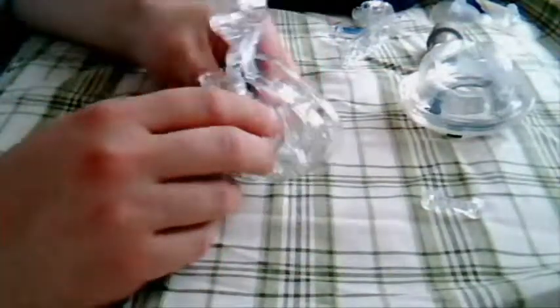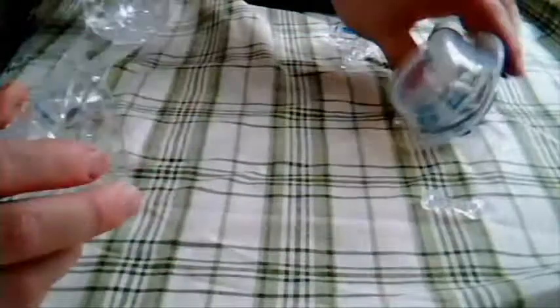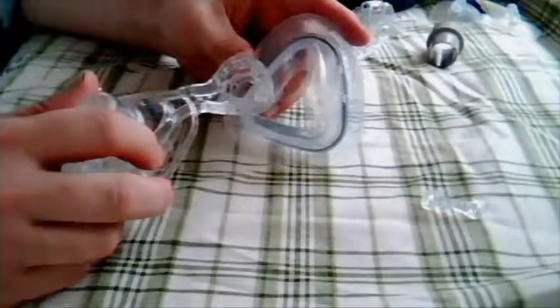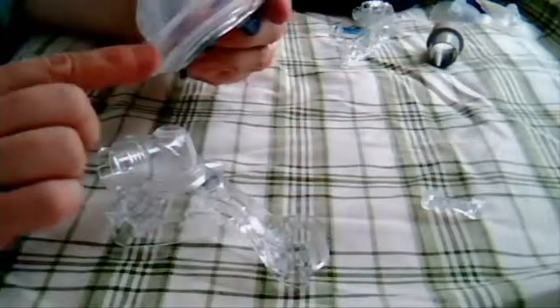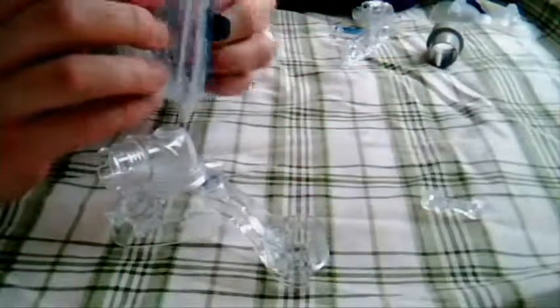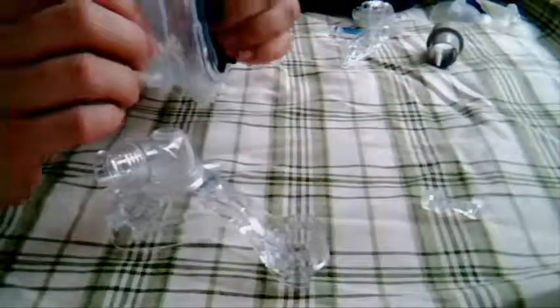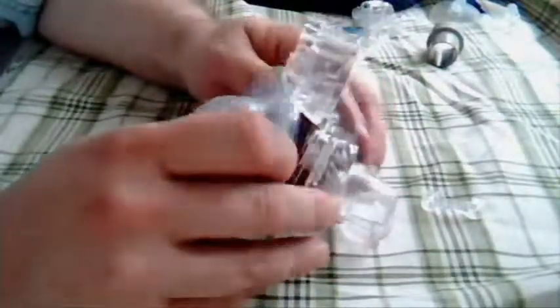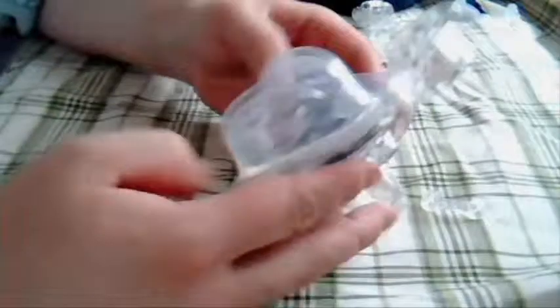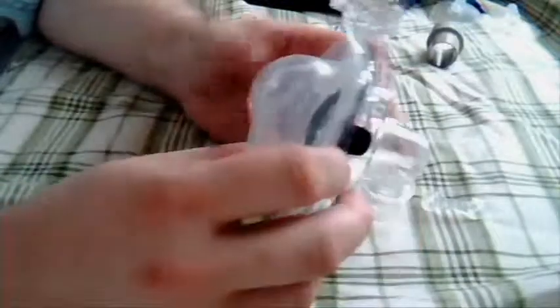The things I like about this mask, the real features that make it - I can't say enough about the active cell technology. There is a little bit of water condensation, and that's one downside. The other downside is you do end up with a mask that's pretty thick. When you put all of this together and clip it back in, especially when the cell is expanded, you've got quite a substantial piece.